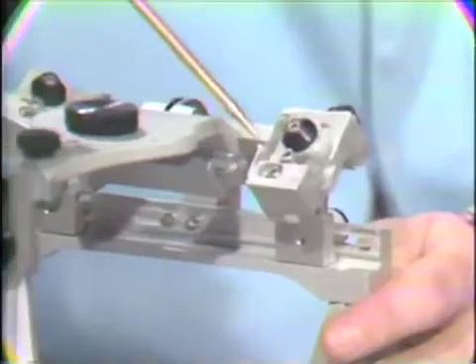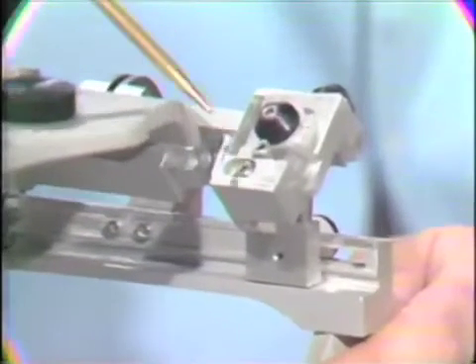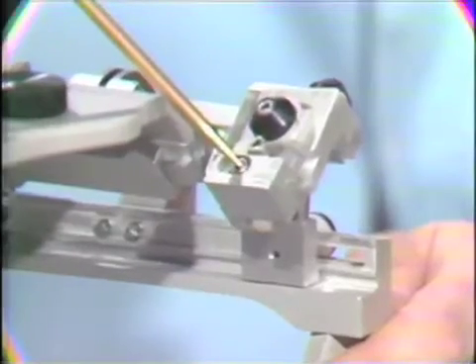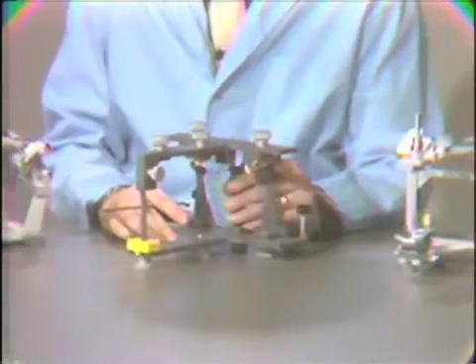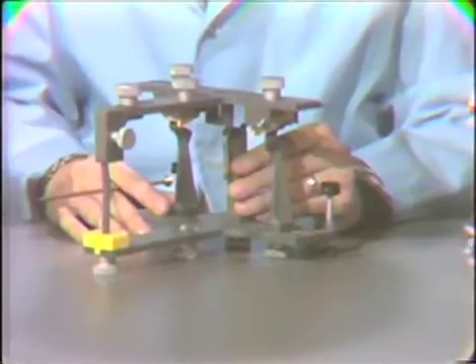We have the ability to program in Bennett movements, as well as the movements programmed with the Whip Mix articulator. Now with the TMJ articulator, we also have the capability of programming in these Bennett movements, and thus it's considered a fully adjustable articulator, or potentially a fully adjustable articulator anyway.